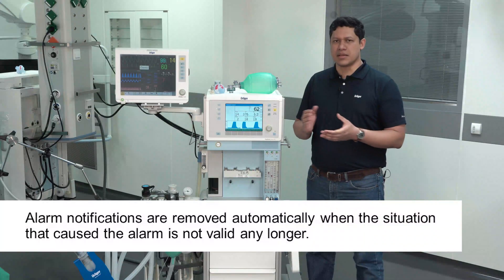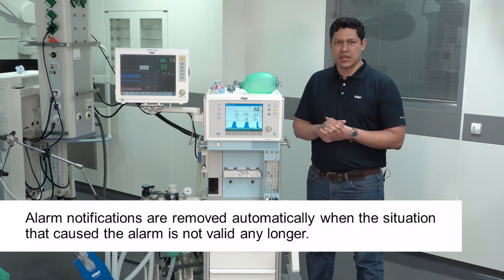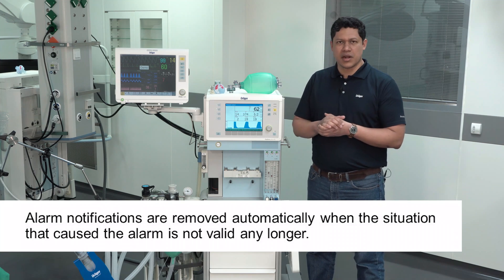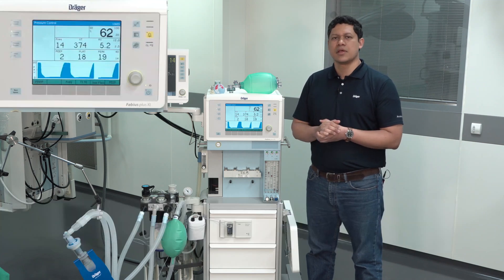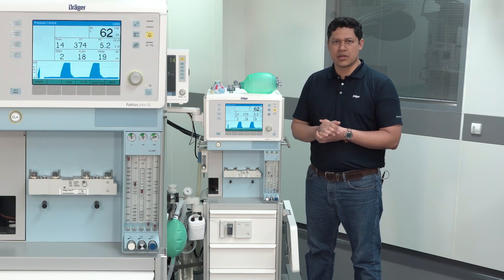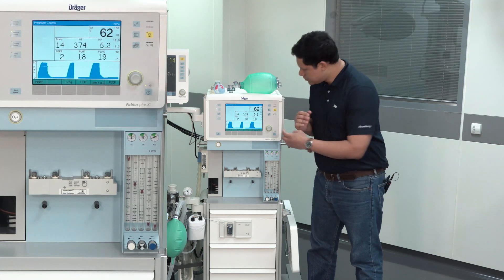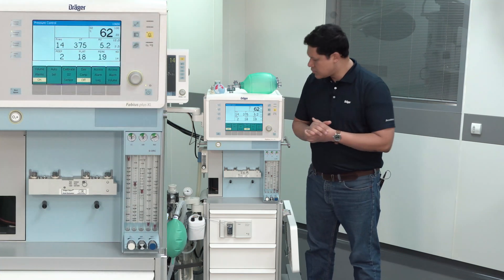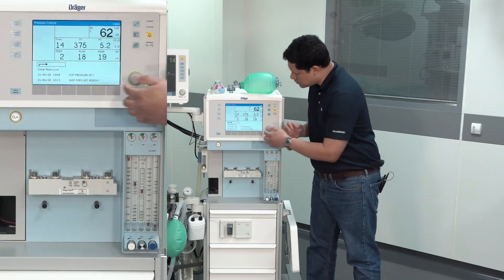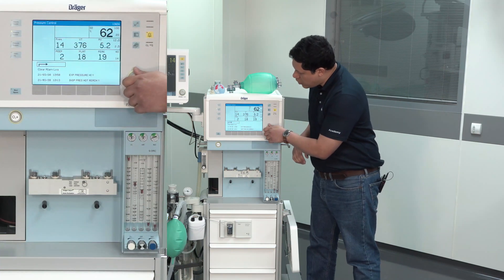Keep in mind: the alarm management on the anesthesia device will automatically delete the display of the message when the situation triggering the alarm has disappeared. To verify if any alarm occurred in the absence of the user, you can access the alarm log book. To do so, press the menu button, access the alarm log, then scroll down to verify all alarms.